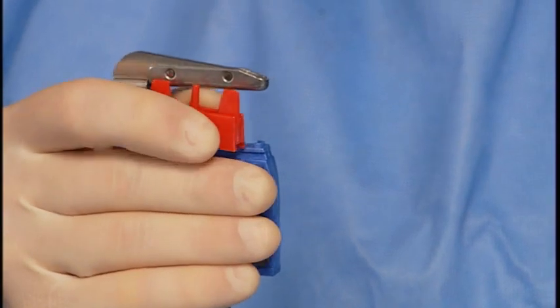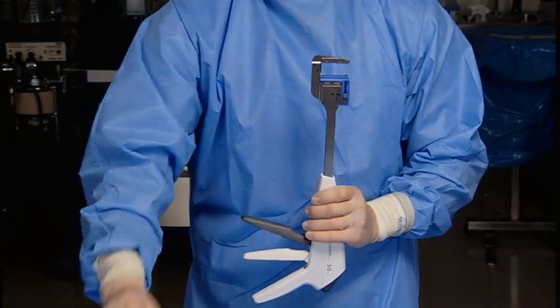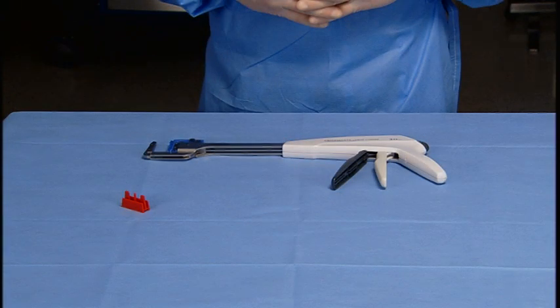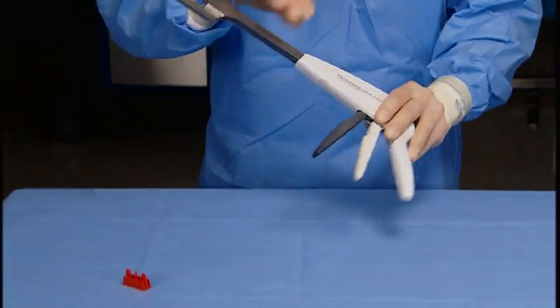Remove the staple retaining cap from the instrument and discard. Depress the release button to ensure the instrument is in the open position and the retaining pin is fully retracted into the reload.